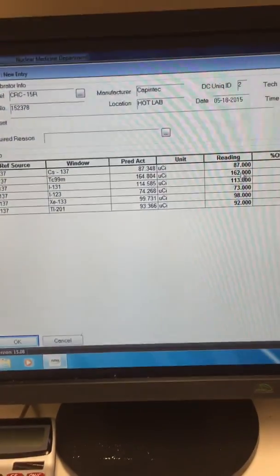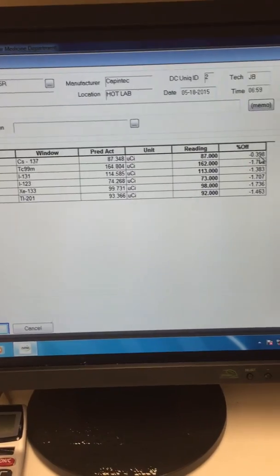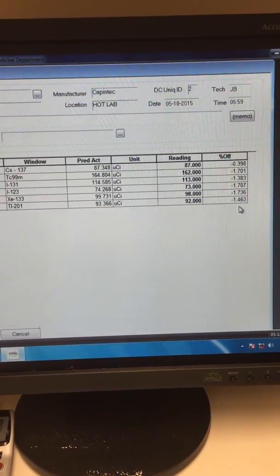So if you want to look over here. These are our actual readings. And this is the percent they're off. So we're well within our range.